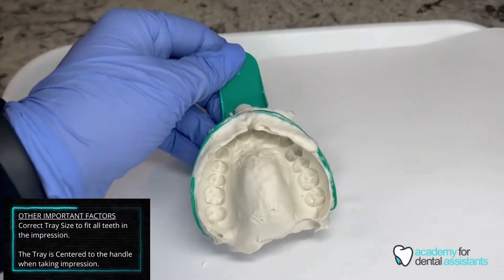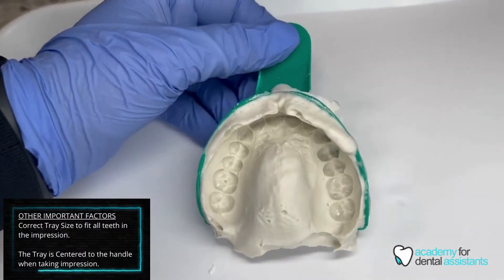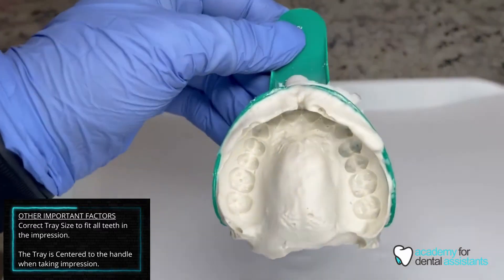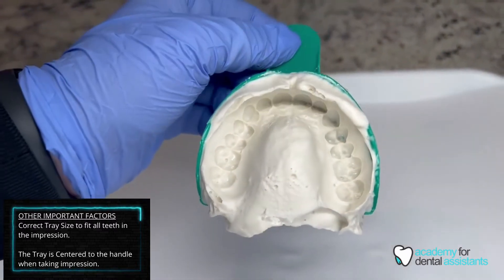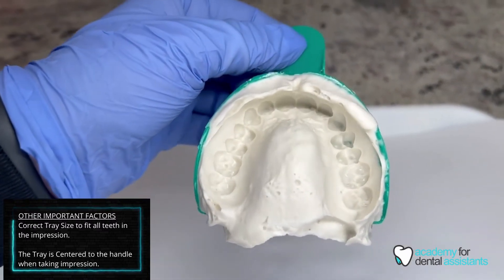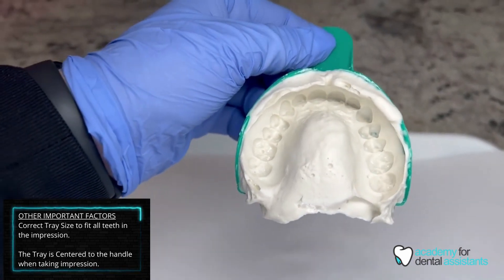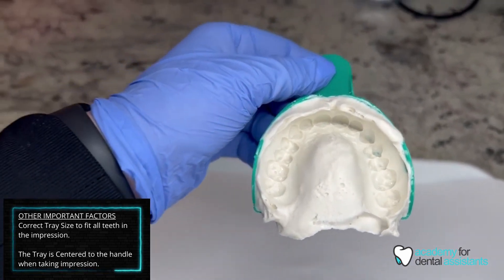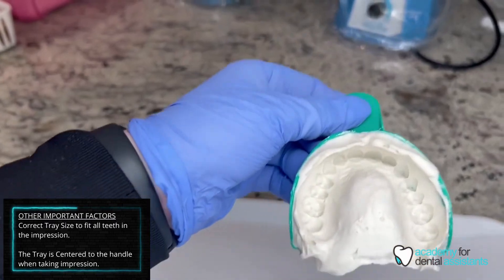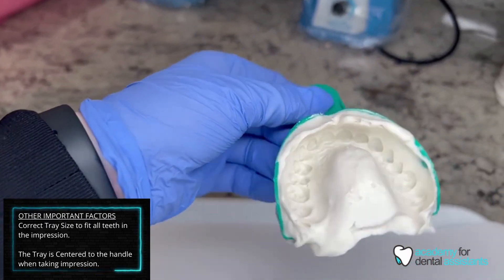I have a good impression of the palate, all of the teeth, as well as the distal of the back molars. So this would be a very good example of a preliminary impression — an impression that you can take before dentures, before partials, or for a retainer.